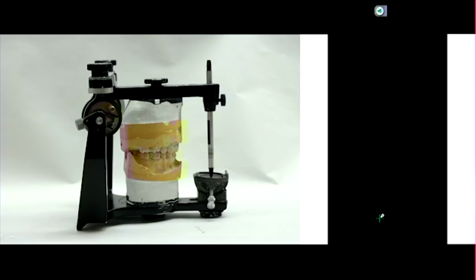I've got one that I can pass around, and you can put this back together. I don't know how it goes back, but we'll figure it out. They also design a different type of articulator where it's the reverse. You can't take this one apart, but the upper member is where what simulates your fossa is located. These little metal pieces represent your glenoid fossa and articular eminence, so that's anatomically correct.